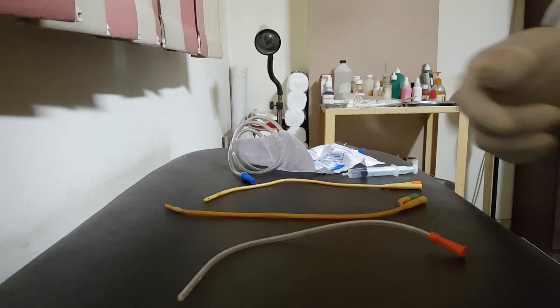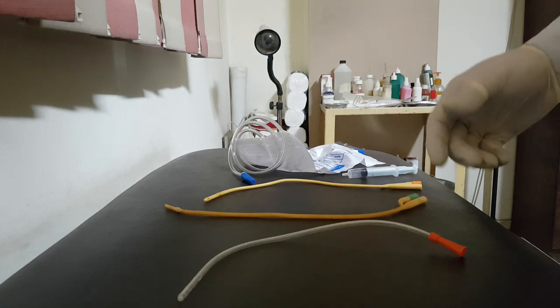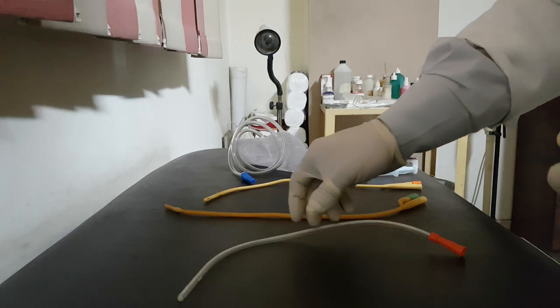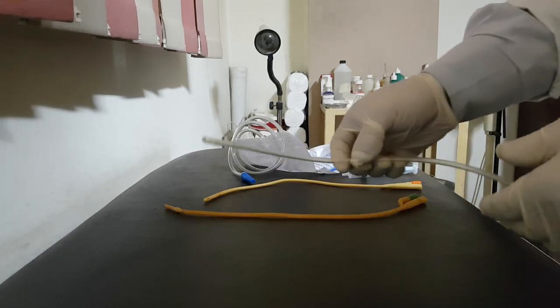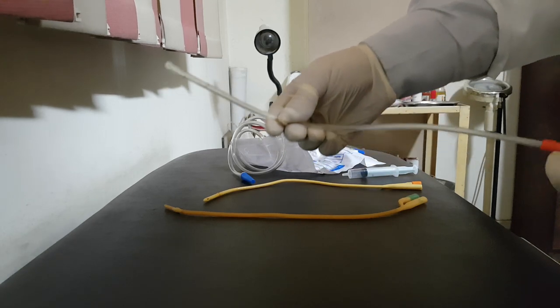Hello my dear, I'm Dr. Alaa Musbah, Professor of Obstetrics and Gynecology, Faculty of Medicine at Mansoura University. What we have today? We have urinary catheter insertion and what are the types of catheters.